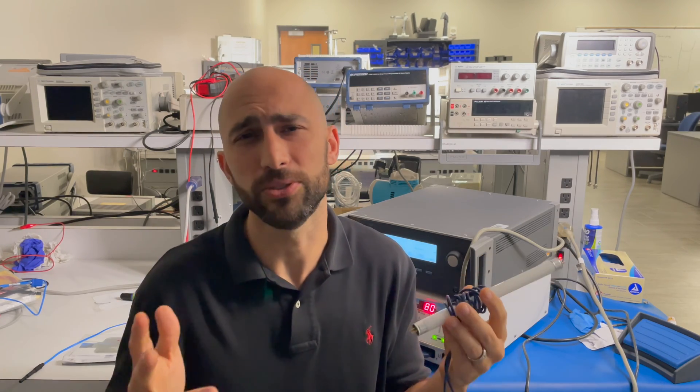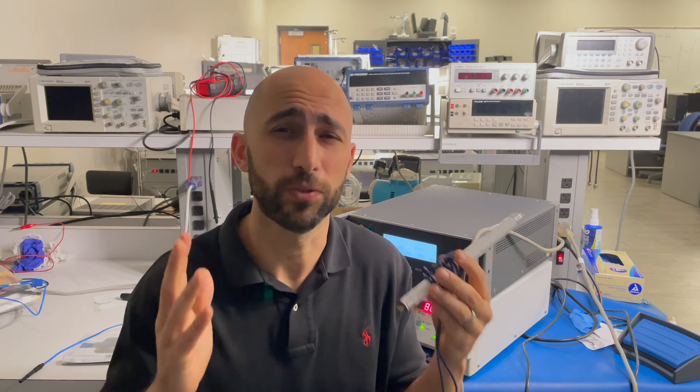So what do we do about this? Is there any safety concern with this? Yes, absolutely. That's why we do high frequency leakage tests. Let me show you what those look like on our ESU analyzer.